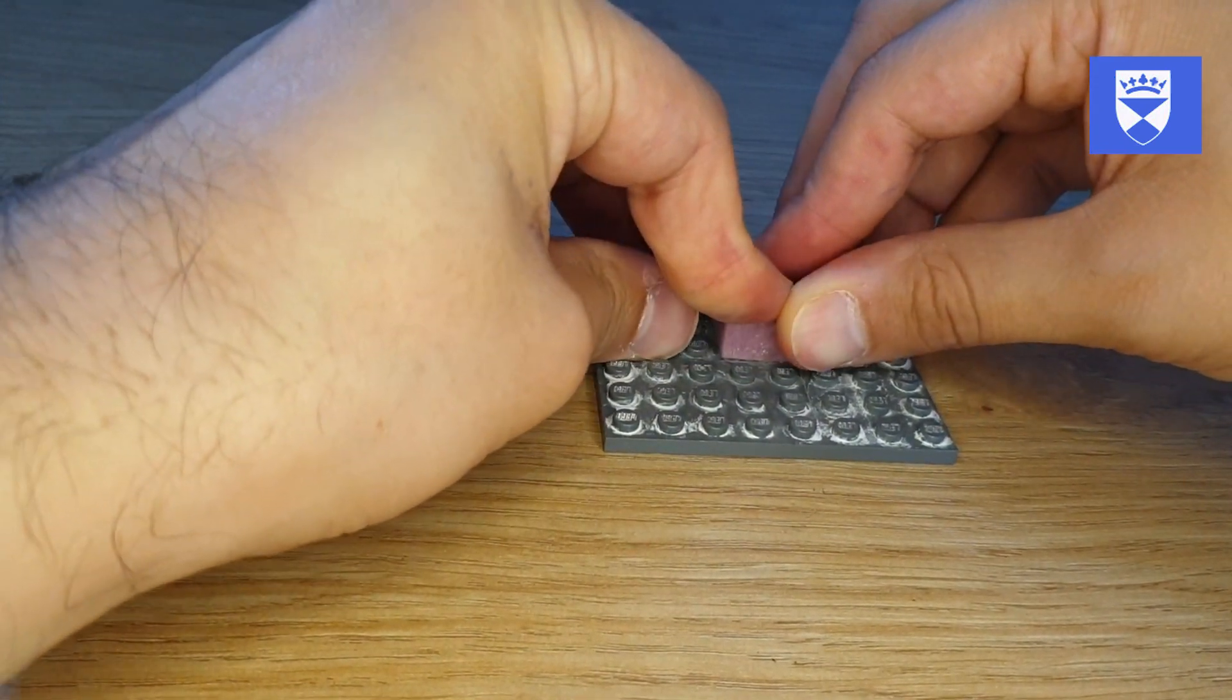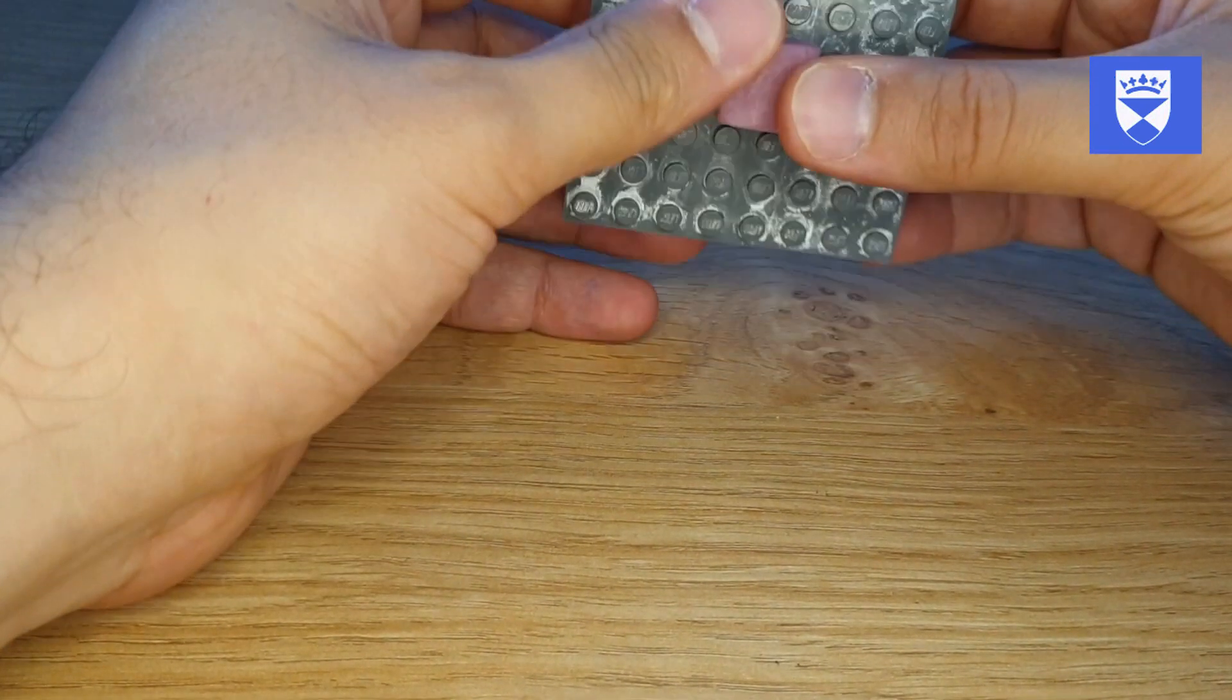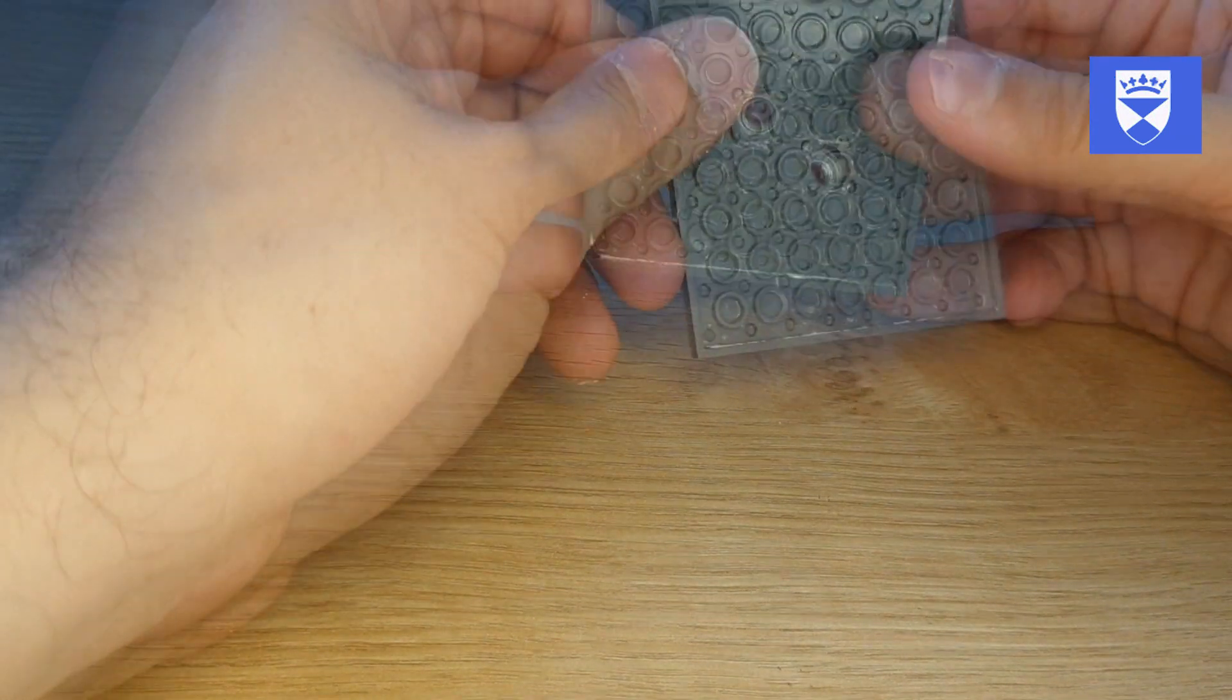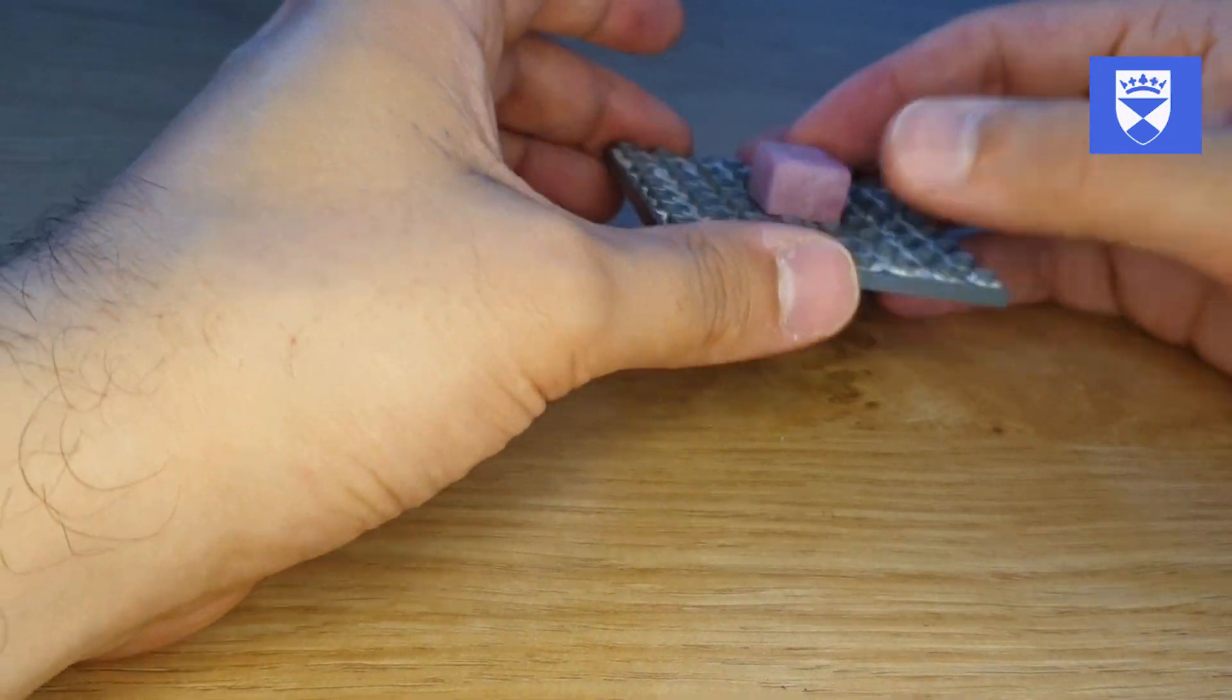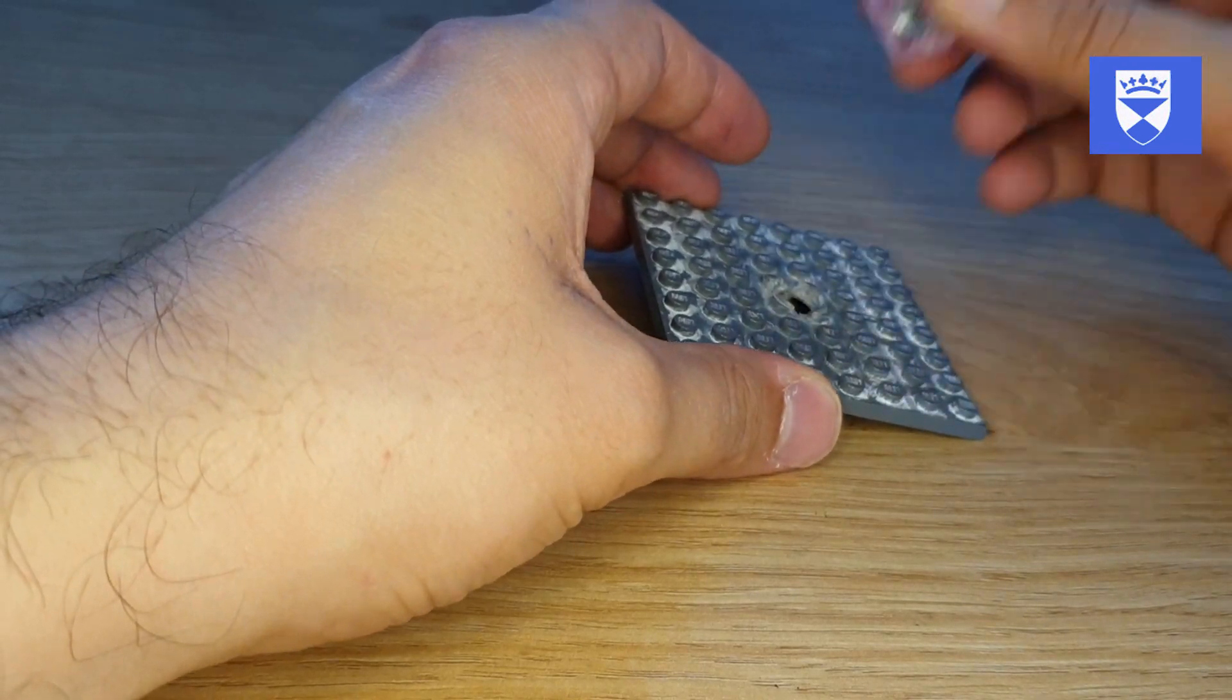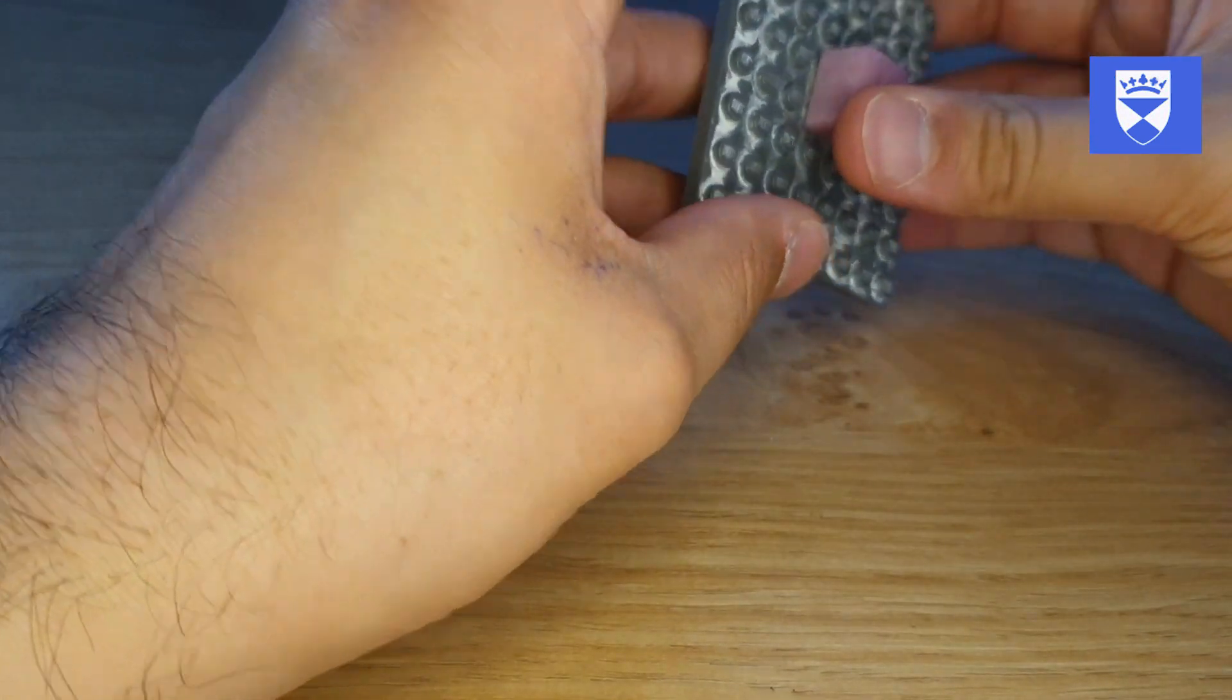This block fits onto the plate and then we could mount this in the mannequin head. However, using this system had significant errors and the block could have detached and sometimes the screws did not engage in it.